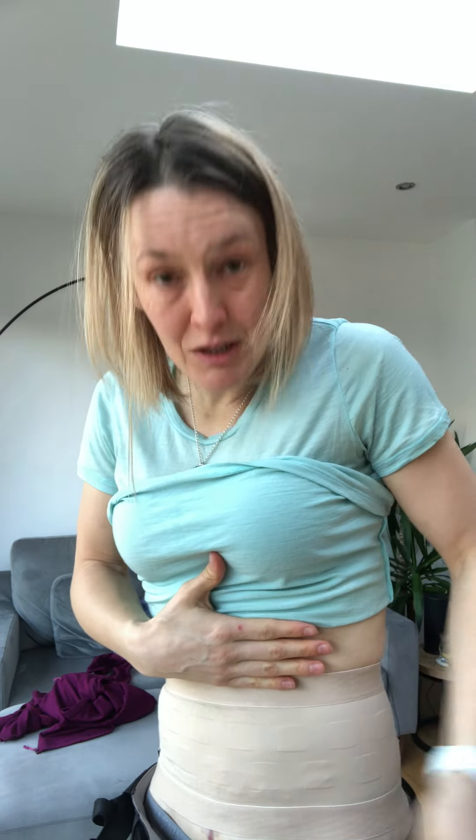It's tight but it's not too tight. It's good for just during the day, keeping everything in, especially if I'm out walking, doing exercise, or yoga. It keeps the bag nice and tight. So that's me.